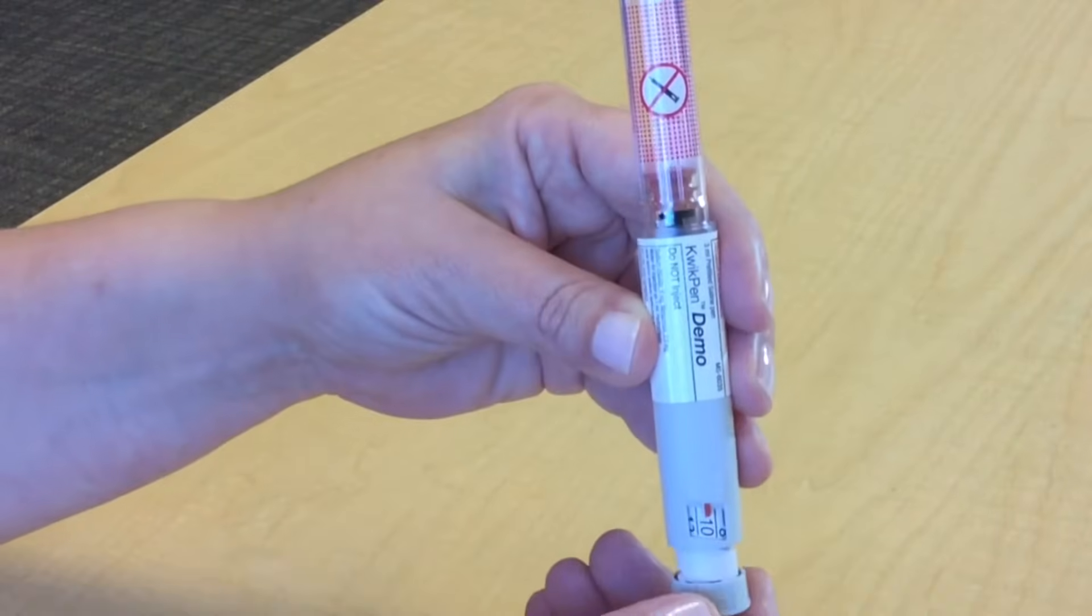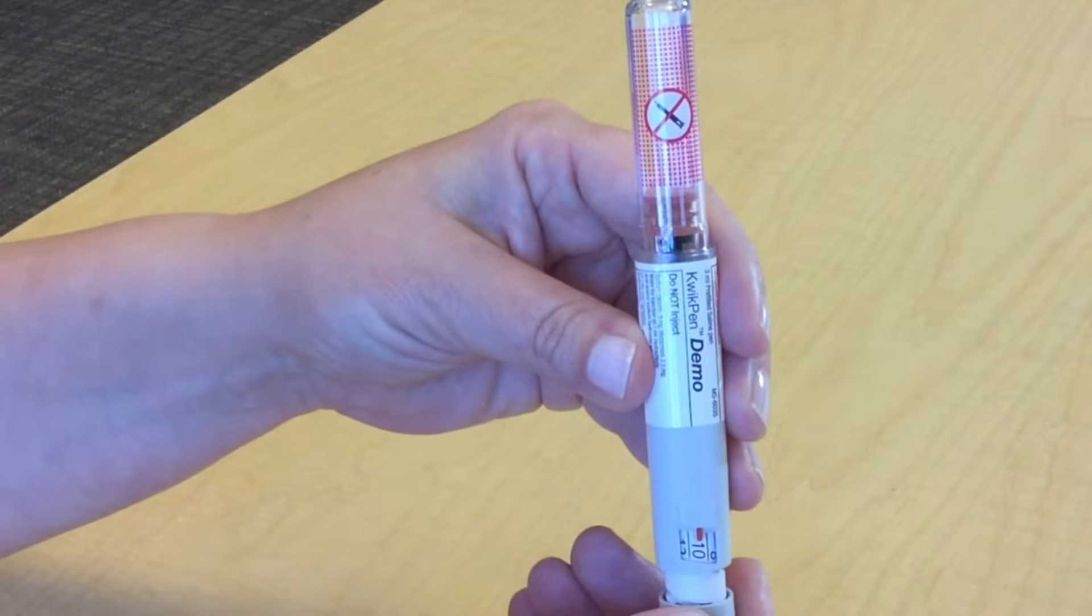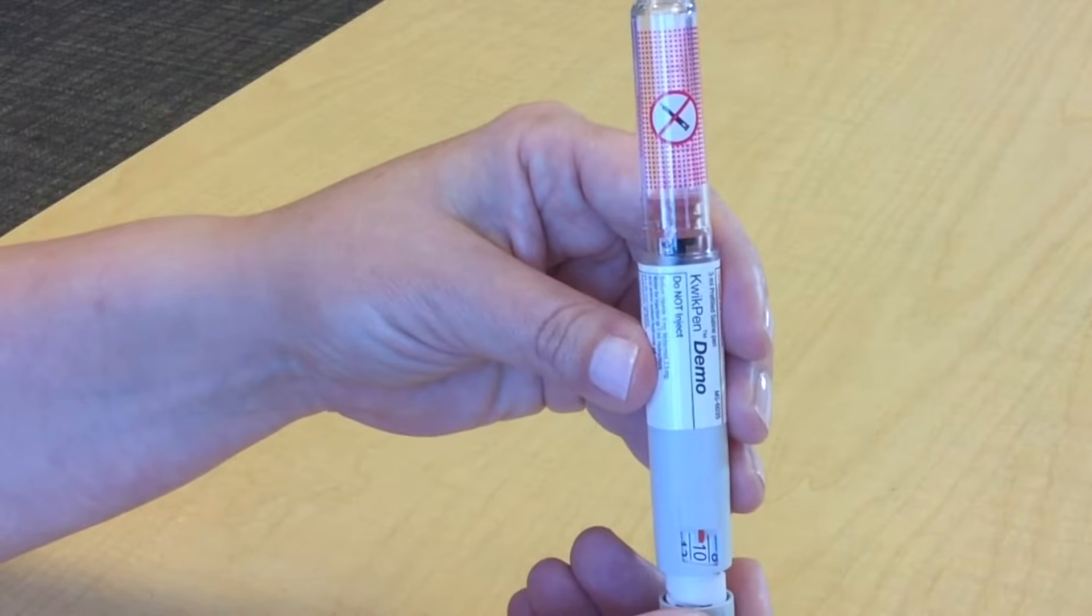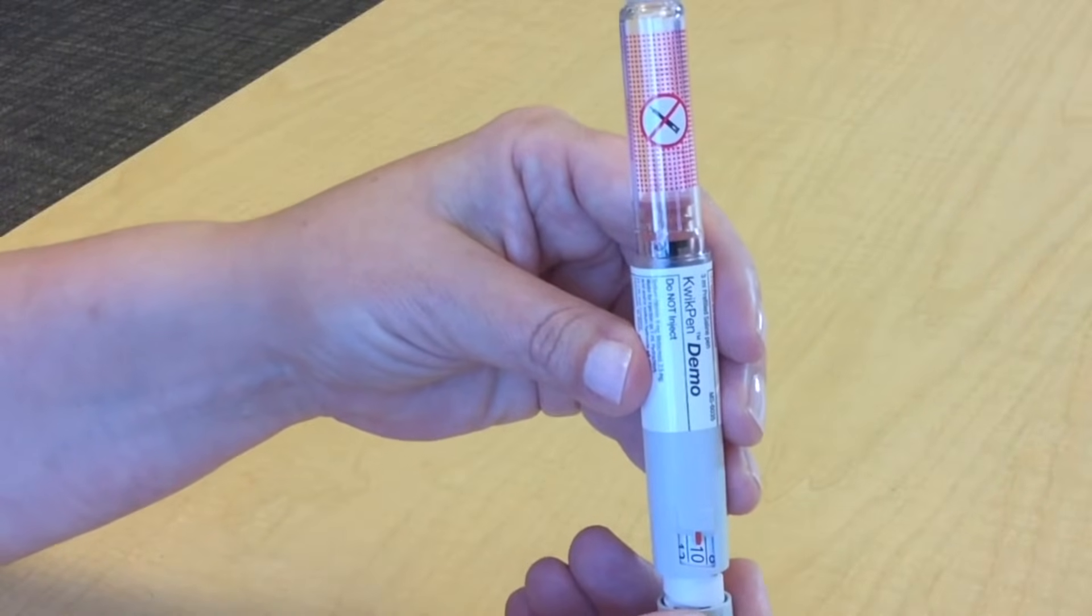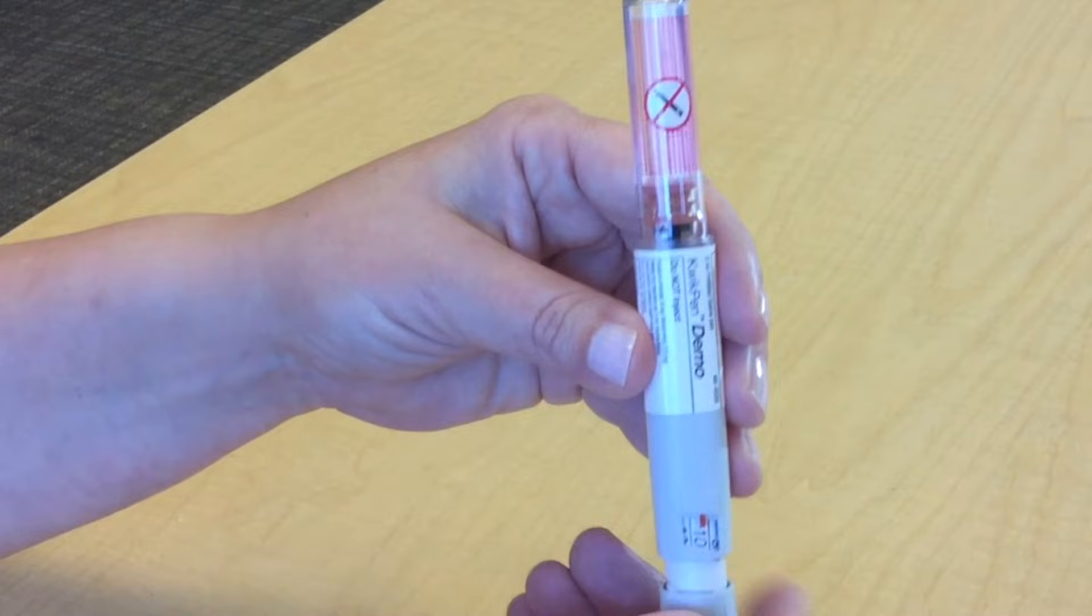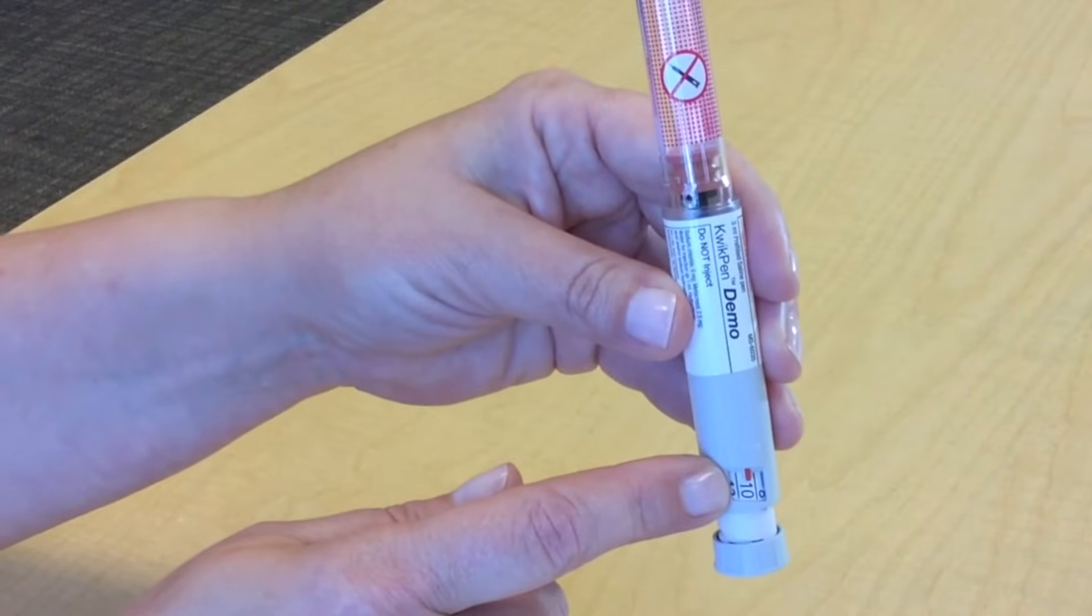Do not count the clicks to measure your dose. The clicking sound doesn't match up to the units. Always confirm that your dose is in the dose window.